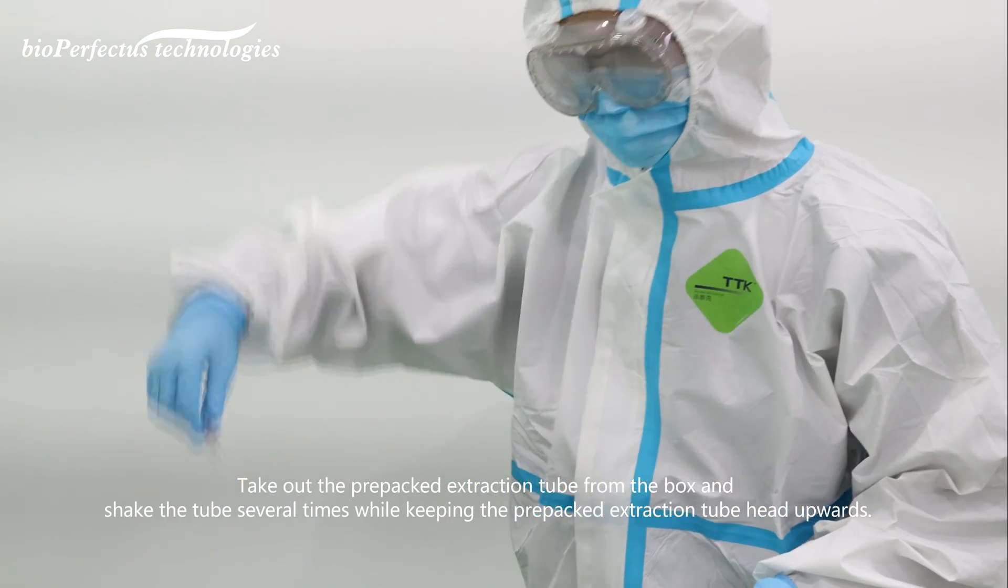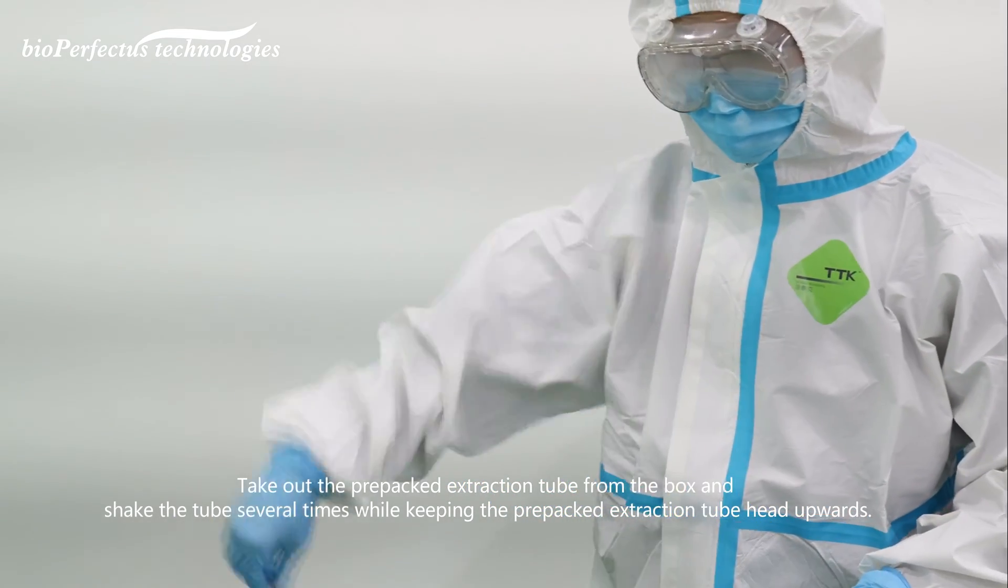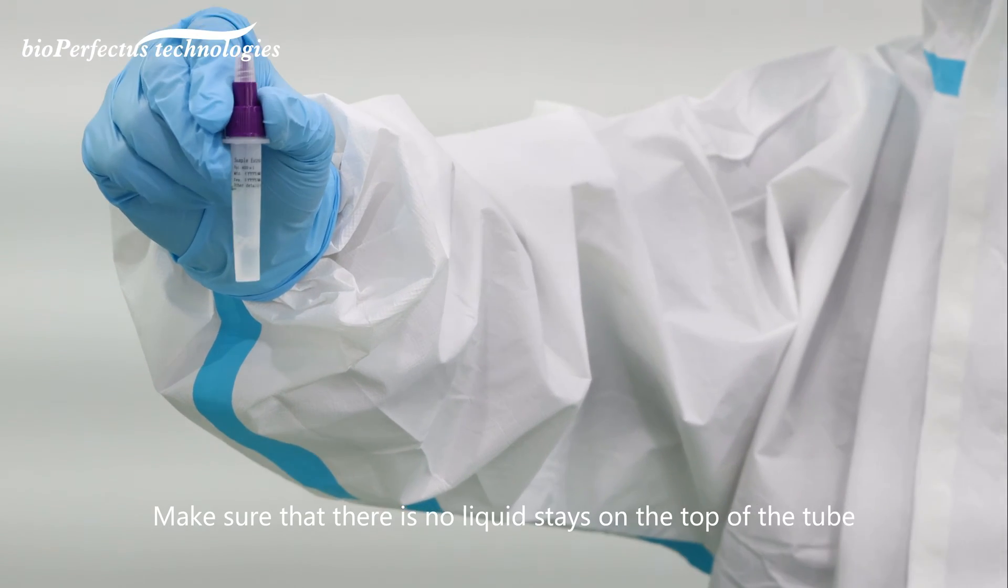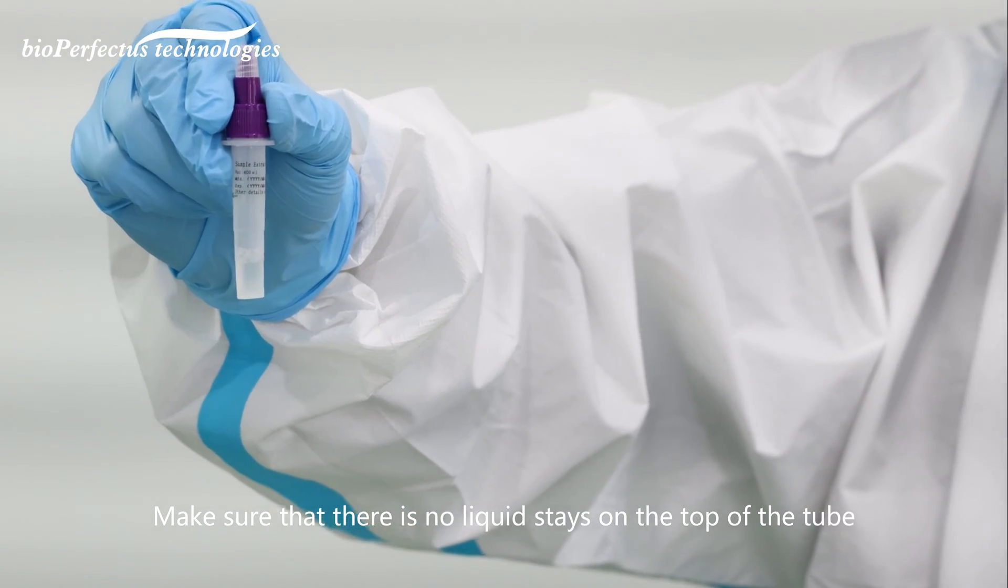Take out the pre-packed extraction tube from the box and shake the tube several times while keeping the tube head upwards. Make sure that there is no liquid on the top of the tube.